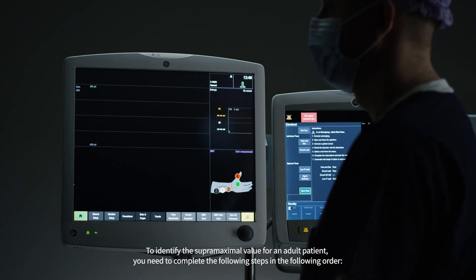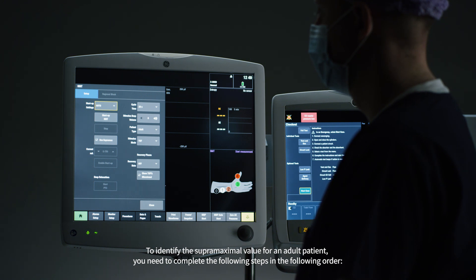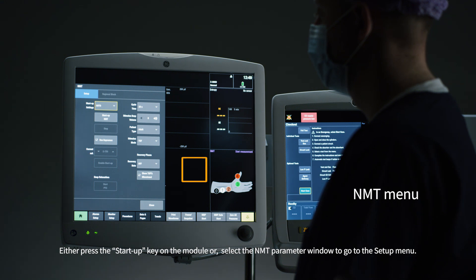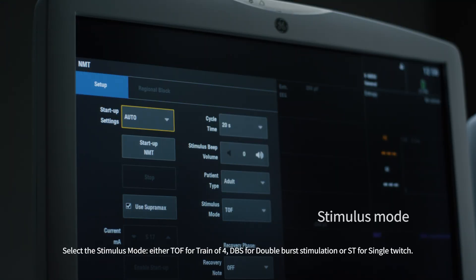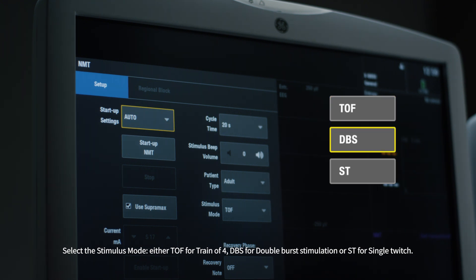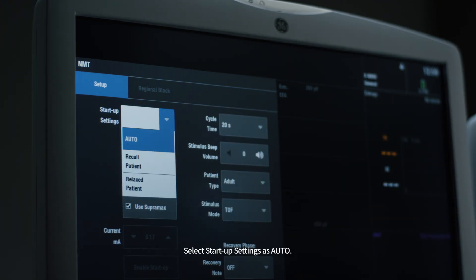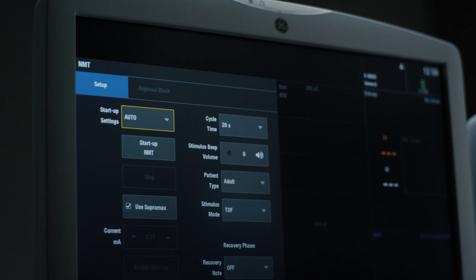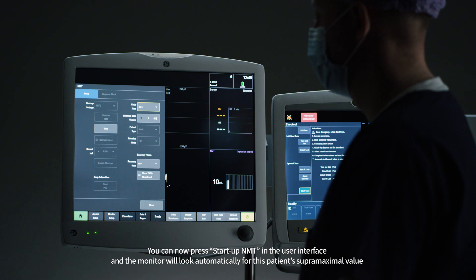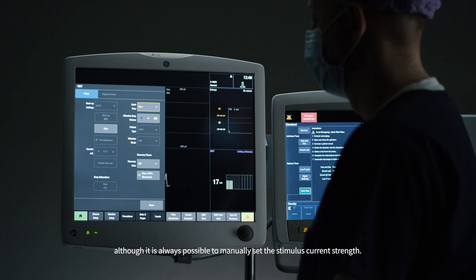To identify the SupraMaximal value for an adult patient, complete the following steps in order. Either press the startup key on the module or select the NMT parameter window to go to the setup menu. Select the stimulus mode — either TOF for train of four, DBS for double burst stimulation, or ST for single twitch. Select startup settings as auto. You can then press startup NMT in the user interface and the monitor will automatically look for this patient's supramaximal value, although it is always possible to manually set the stimulus current strength.